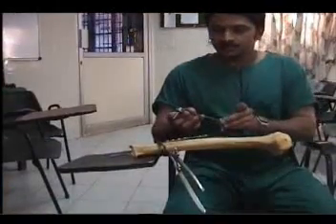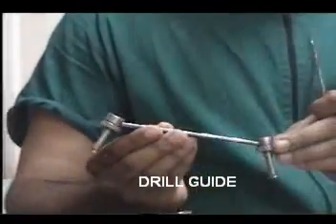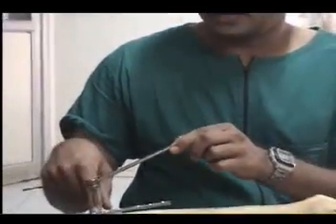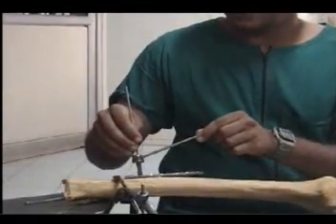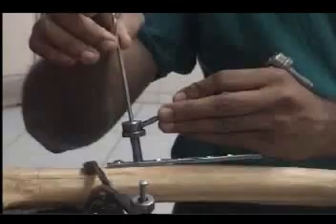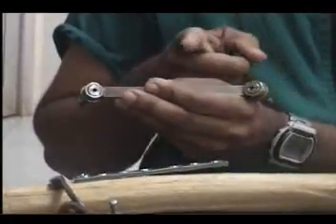This instrument is called the drill guide. The drill guide has two sides — even though they look similar, if you look carefully you will notice that one hole is central and the other hole is eccentric. The eccentric side is called the load or compression screw side. The drill guide is placed through the holes on the plate, and once placed, the drill guide decides where your drill goes. If you use the loading or compression side, it goes in eccentrically; if you use the other side, it goes in centrally. Depending on whether you put a neutral screw or a compression screw, the property of your screw to compress the bone varies.